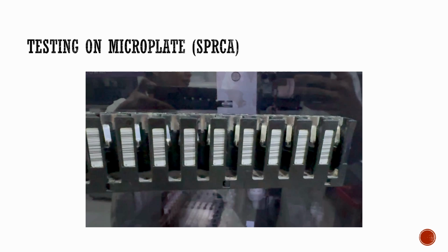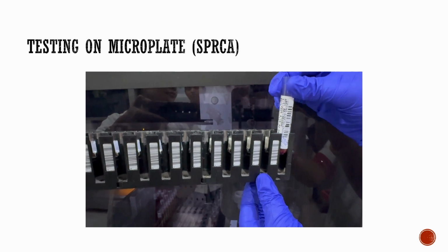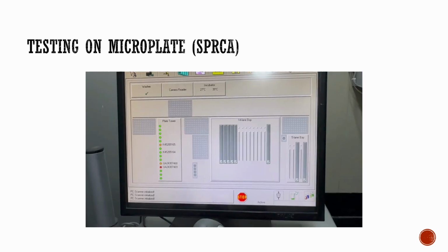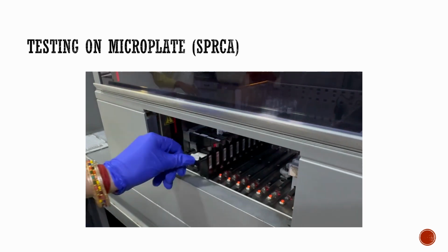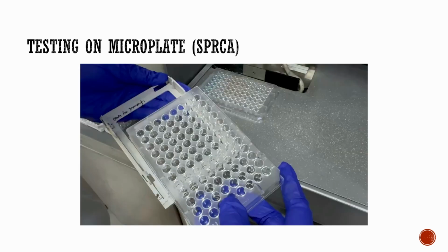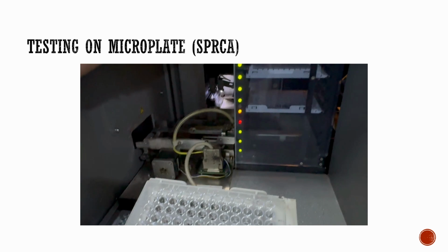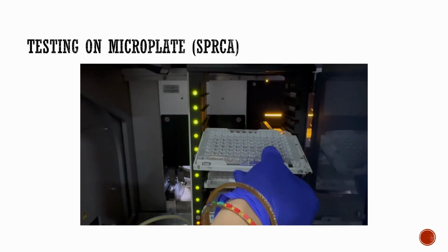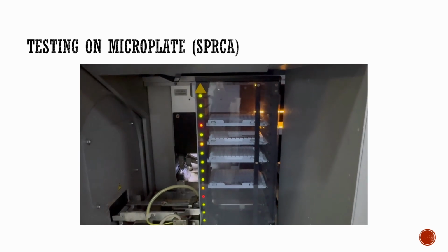Here we will be doing the anti-D testing on microplate using the SPRC technique. For that, we need the barcode-labeled EDTA sample, which is inserted on the rack. The rack is selected accordingly on the machine and inserted into the machine in the designated slot. This is a microplate that contains multiple wells for testing. First, we place the microplate into the transport frame. The transport frame is then placed on the loading tower in the designated slots.